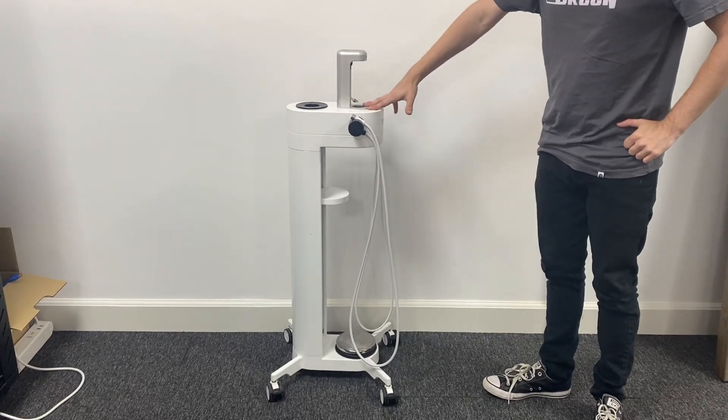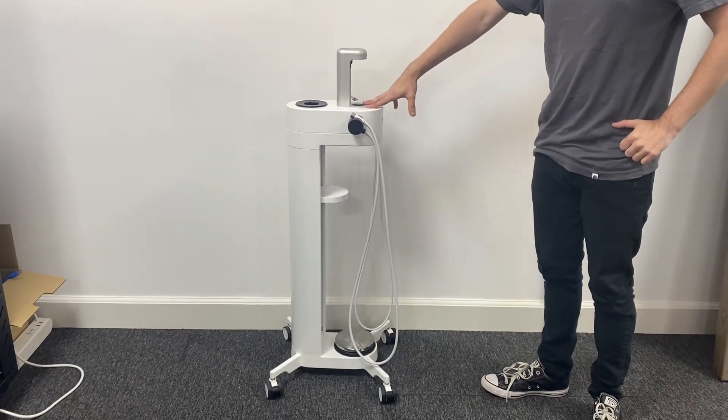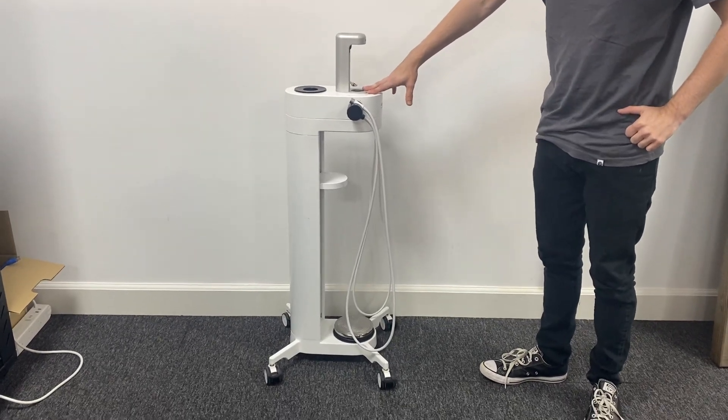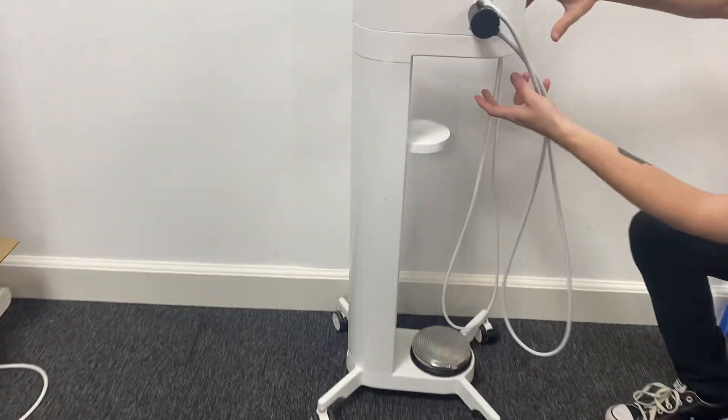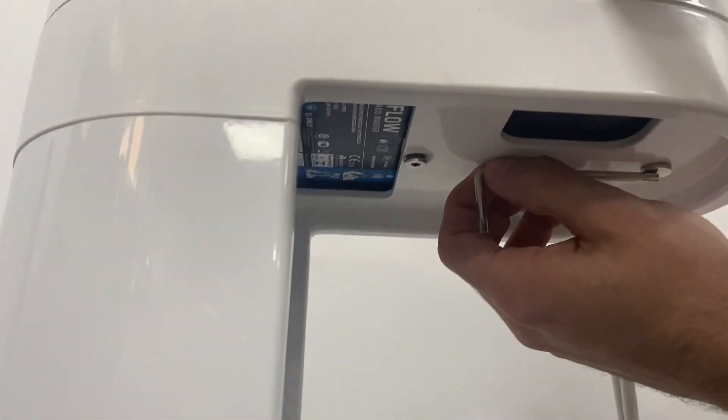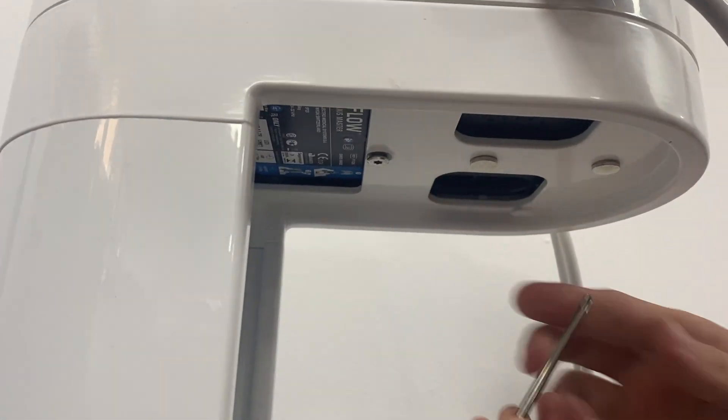This is a quick video to show you how to remove your prophylaxis master from the station. If we look underneath here, you can see this tool is attached by a magnet. You just want to pull that off.